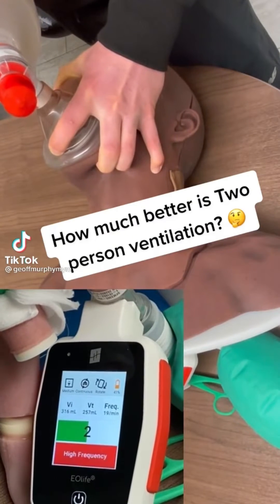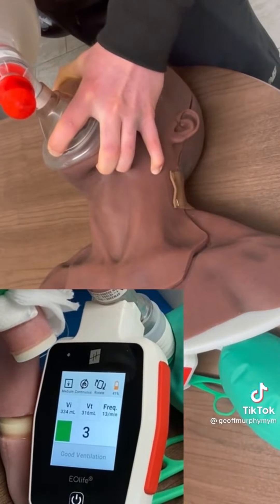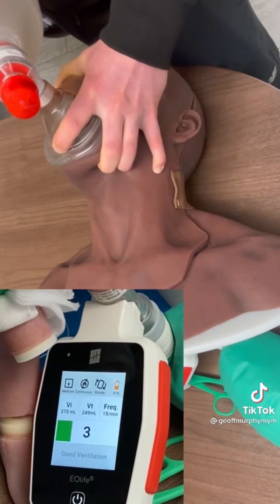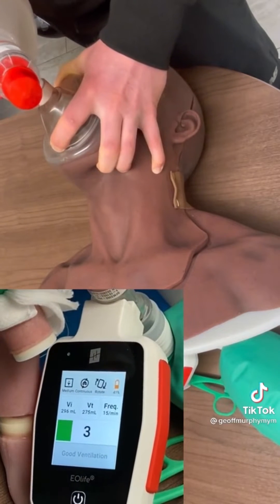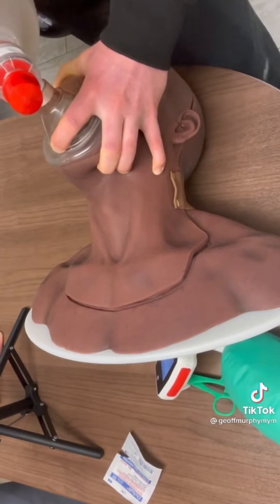Let's see how good we are with one-handed ventilation with the seal on the mask here. You can see we're getting a ventilation volume of about 273, 300 — so low 300s, high 200s is what we're looking at for volume. A little bit under-ventilated when we're using one hand. And the PEEP valve isn't working nearly as well because we're breaking seal. We have some leakage.